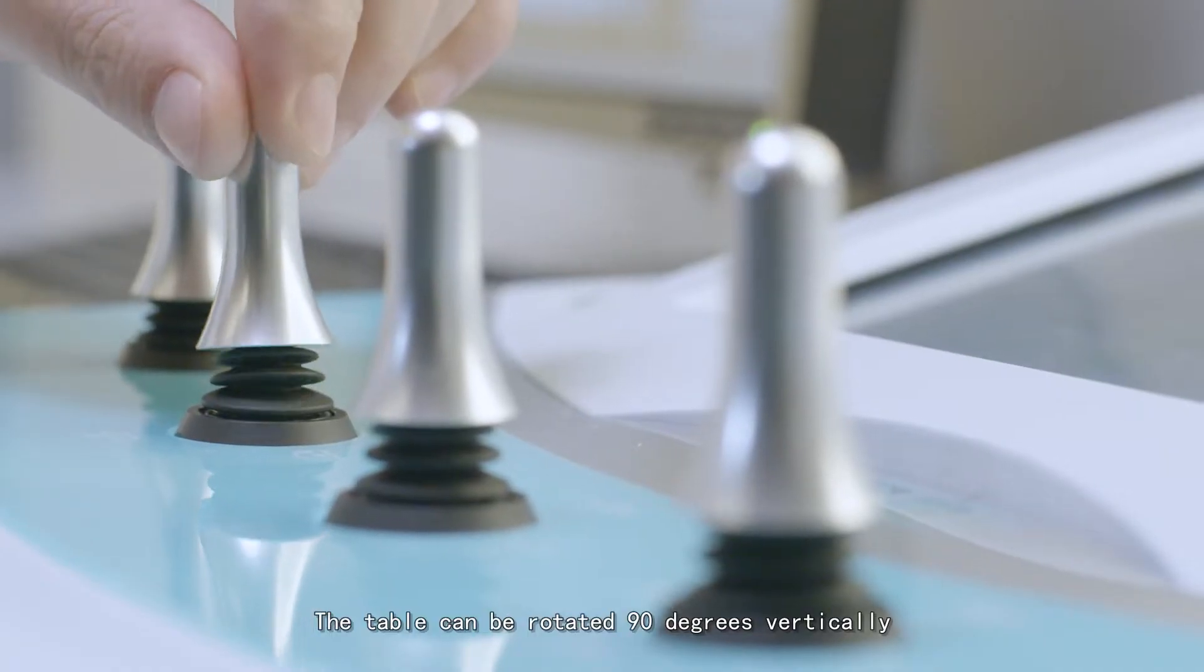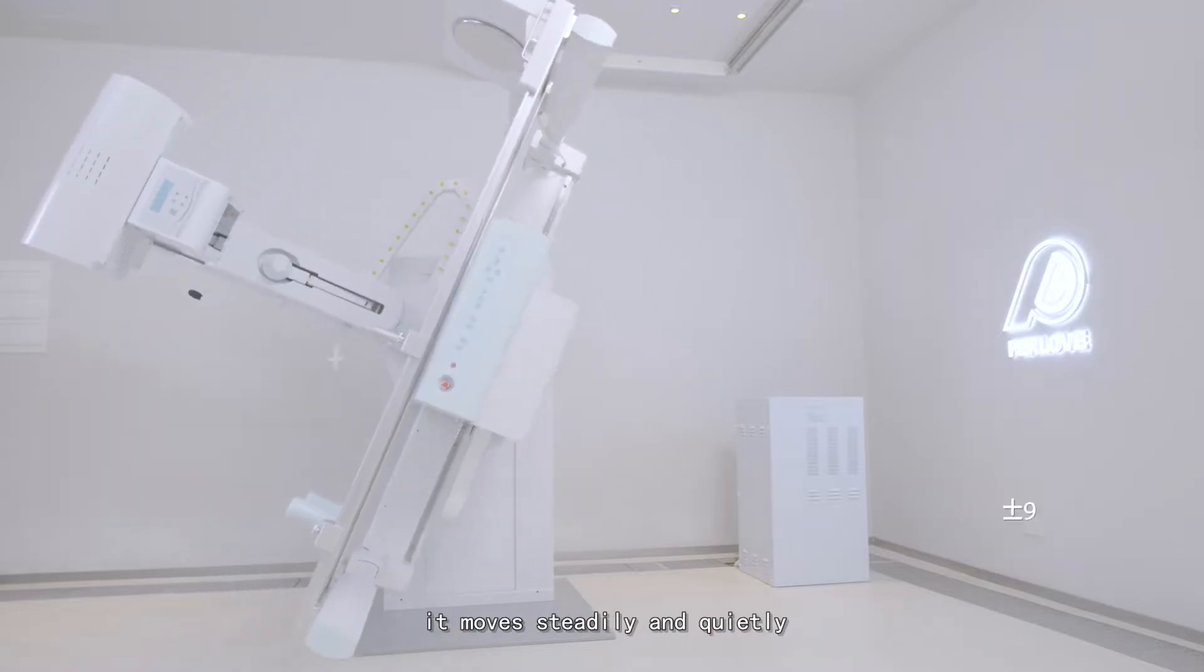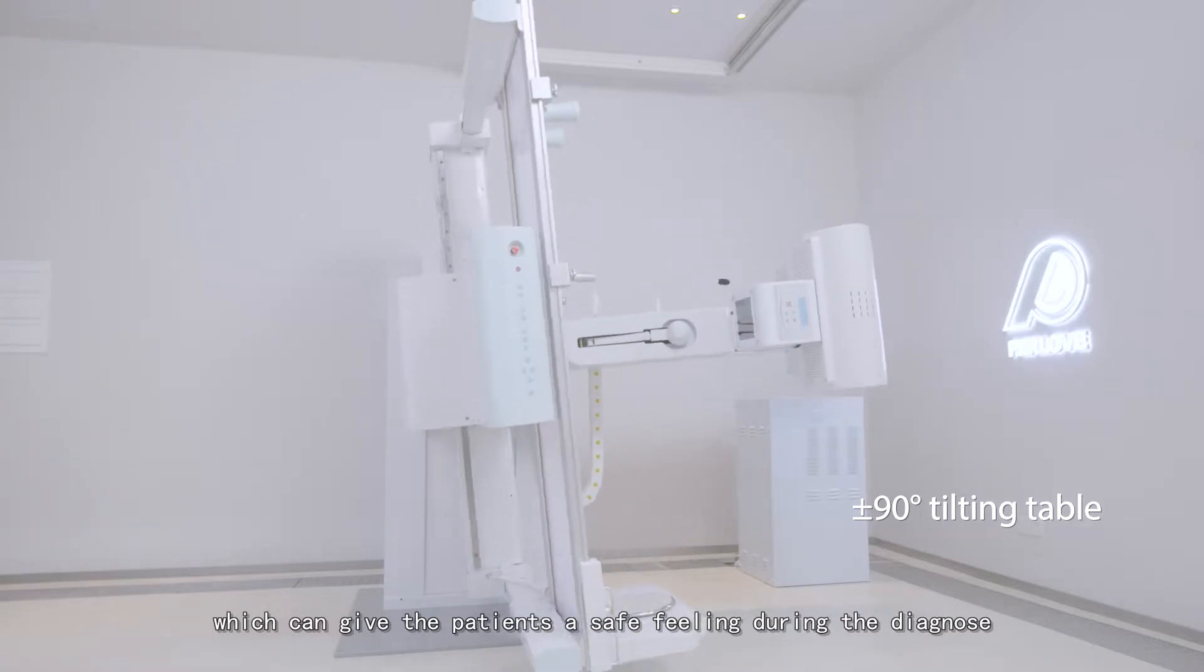The table can be rotated 90 degrees vertically, which greatly extends the clinical application. It moves steadily and quietly, which gives patients a safe feeling during diagnosis.